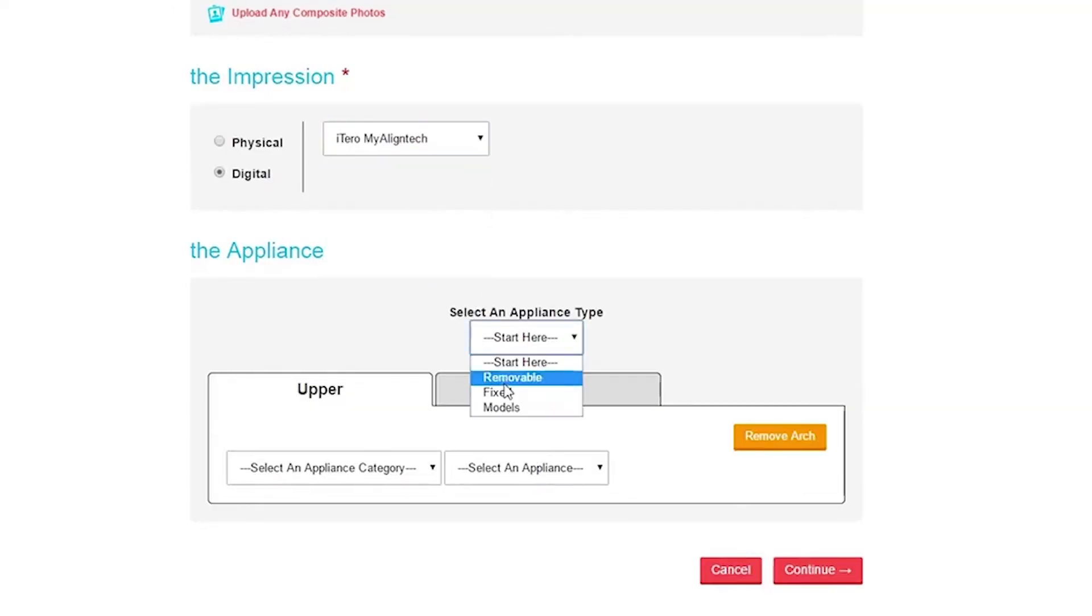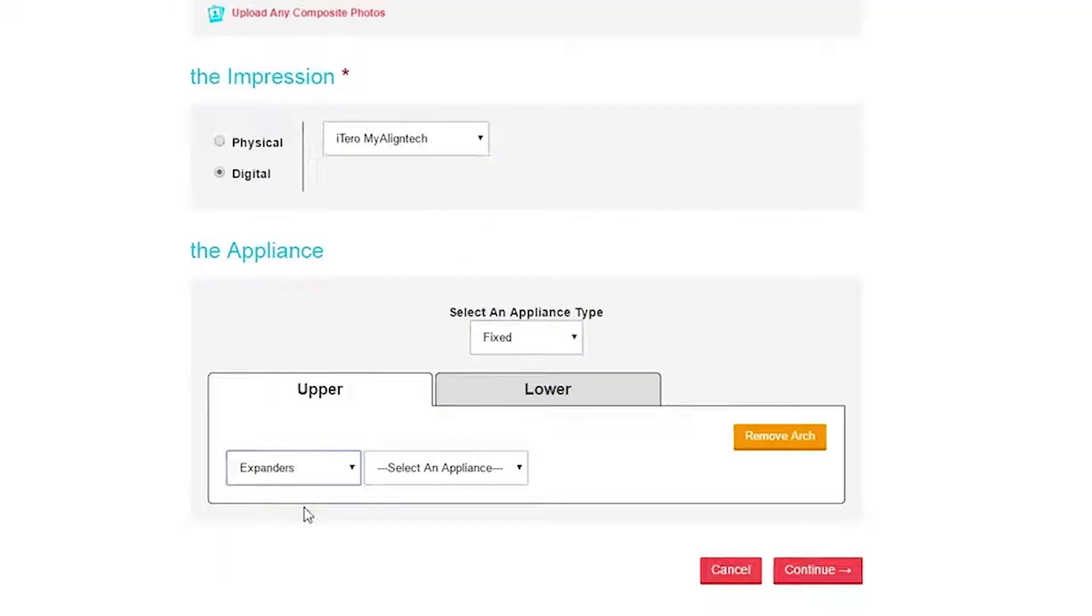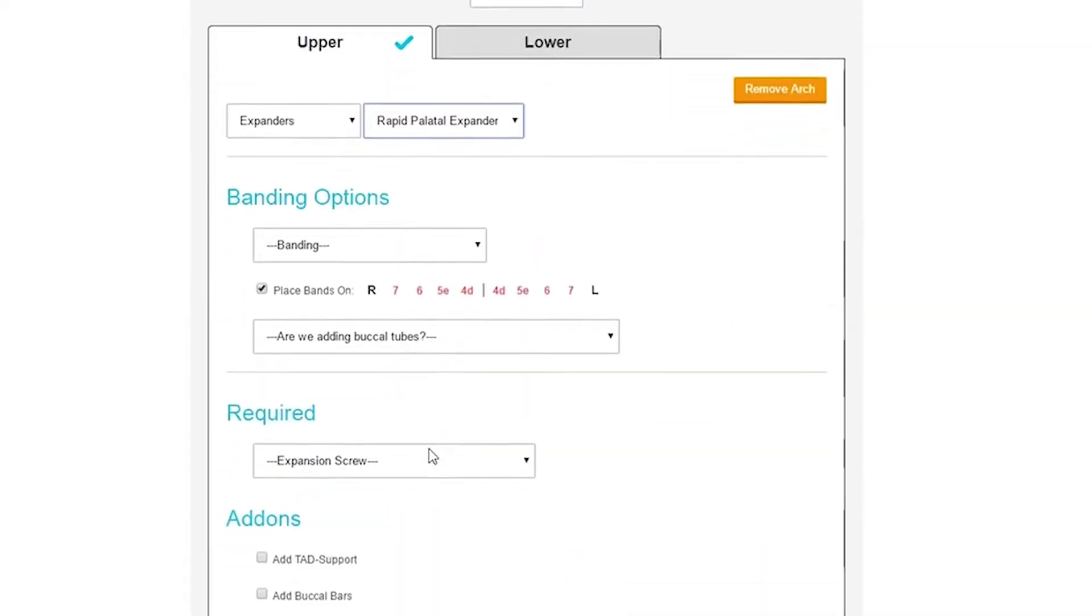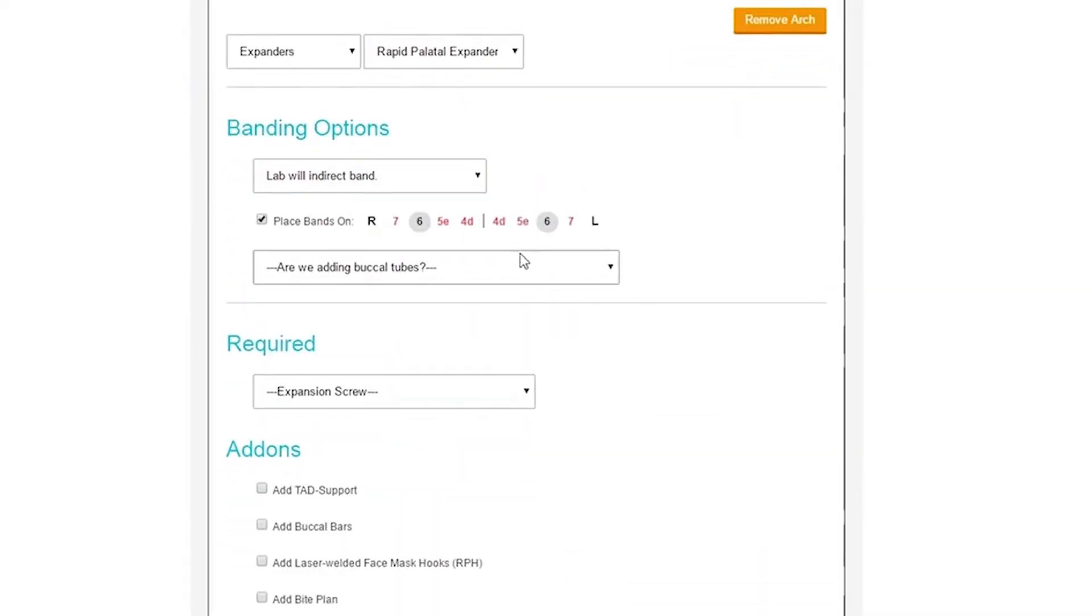It will be uploaded to our proprietary RX wizard portal and at that point the doctor would let us know what exactly we were making from that impression or that scan and it would then go into production to be 3D printed here.